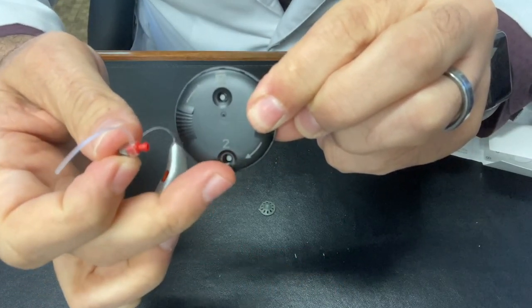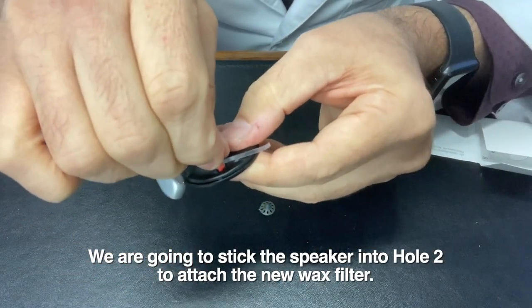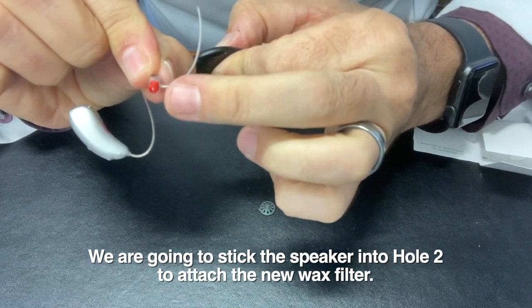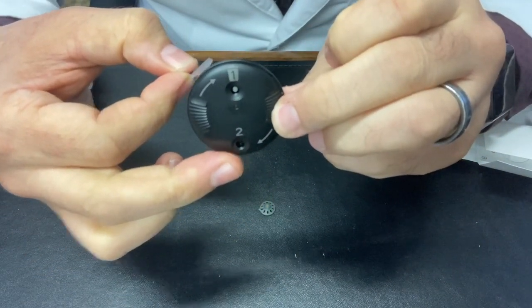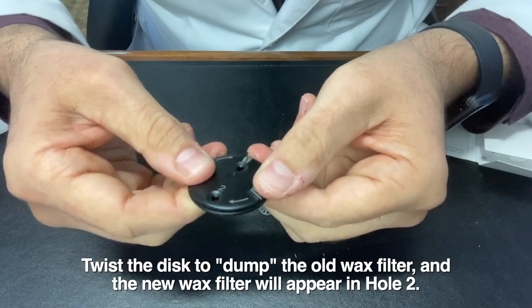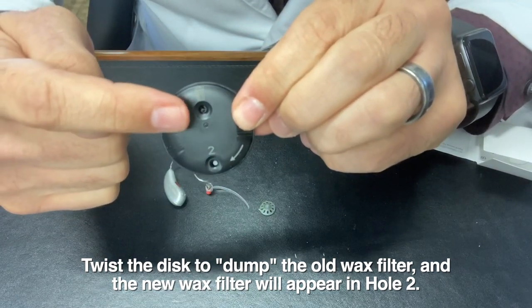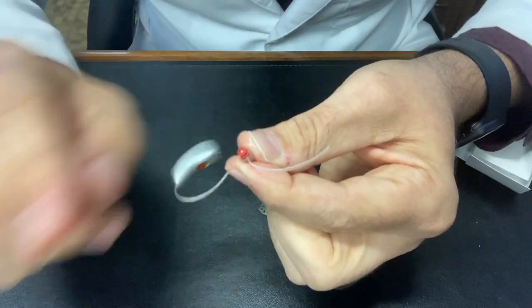Now number two — we're going to want to pull that out of there using the device. I'll stick that into the number two hole, pull it out, and now it has made its way in, and you can see that number two is empty. When it's time to reload, just turn this a little bit and you'll see that once again number one, the trash can is empty, and number two, the new one is ready to be taken out.